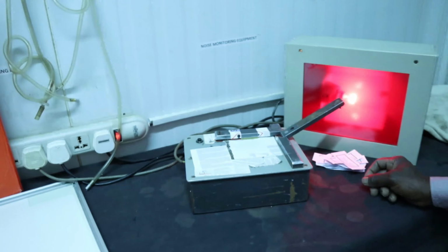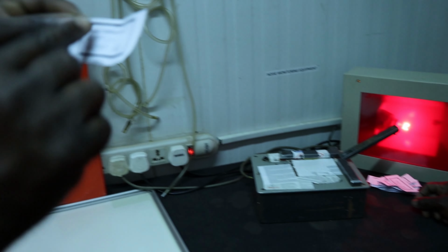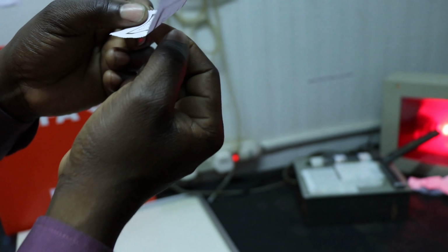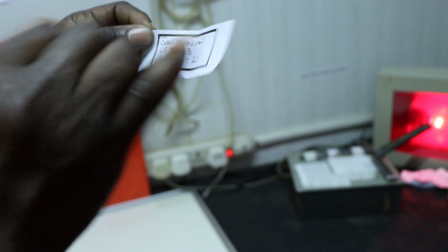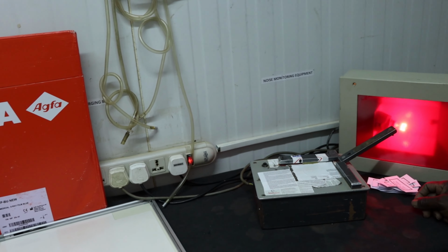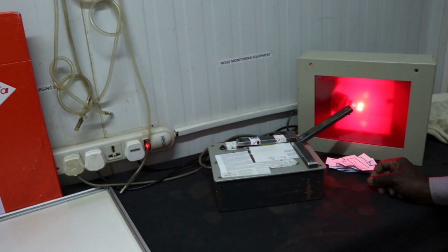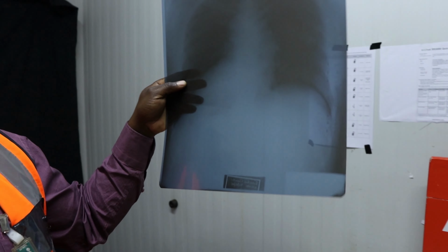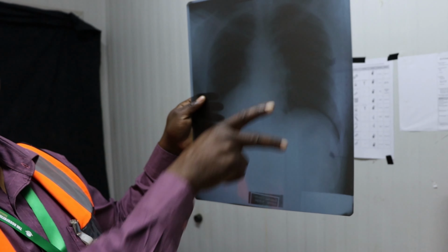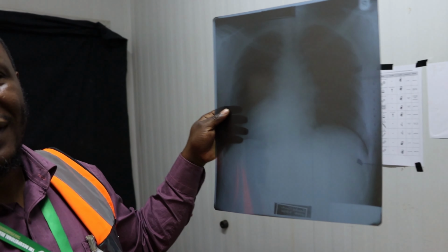So what is basically happening there? It's casting a shadow onto the film. Light is passing through these open spaces, but it's failing to pass through the letters. It casts that shadow, and that's what prints on here now. The same principle works on the X-ray, by the way. When the rays are coming, they fail to pass through this and cast that shadow there. You're able to capture it now.